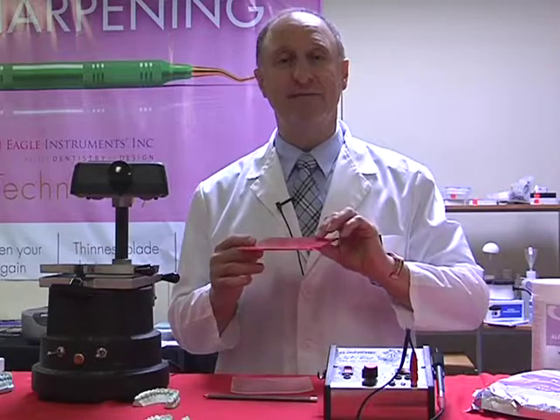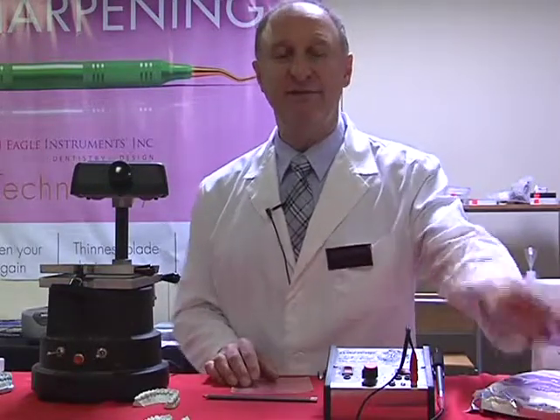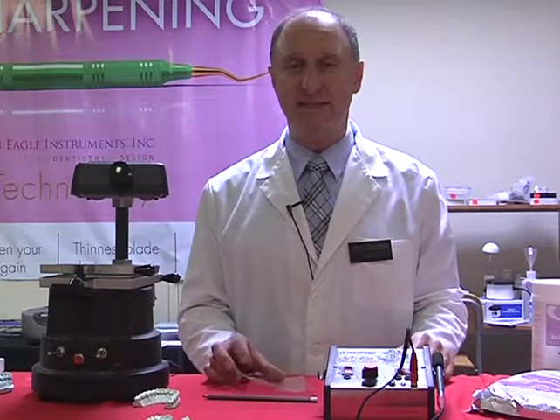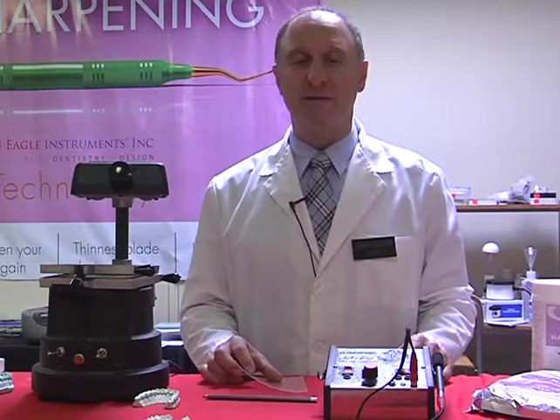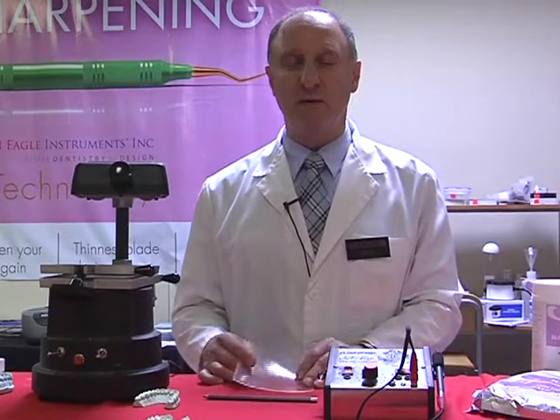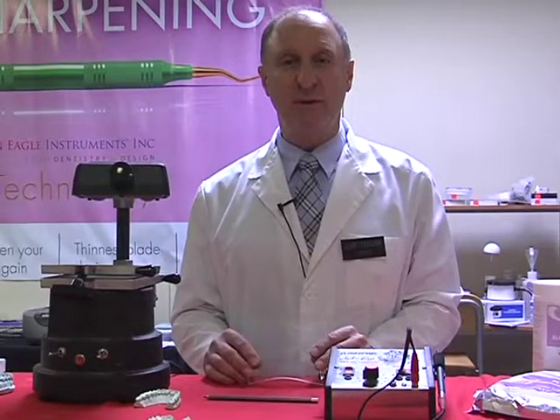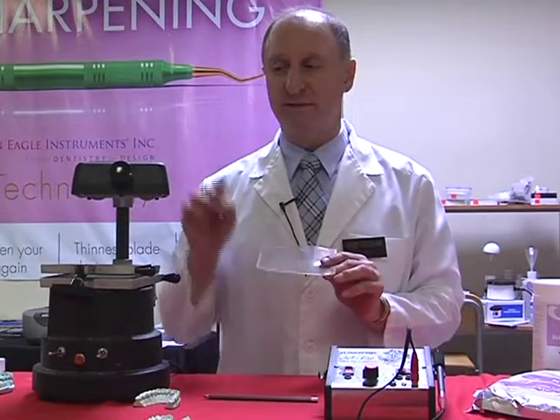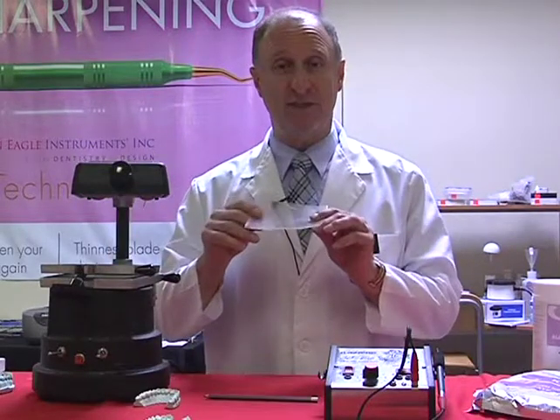And these again come in varying thicknesses. They run in materials which are normally EVA, ethylene vinyl acetate, as well as PVA, polyvinyl acetate. Most of the materials nowadays are obviously safe and easy to use. We're going to use these materials again in the case of thermoforming, where we heat the materials. So in this case, I'm working with a heater on this machine that heats up the sheet of material.